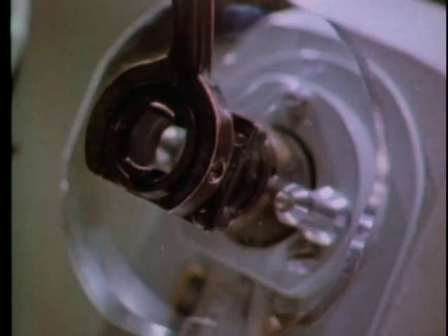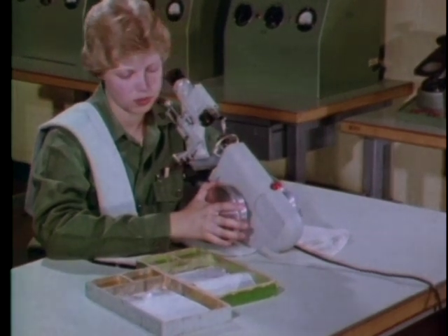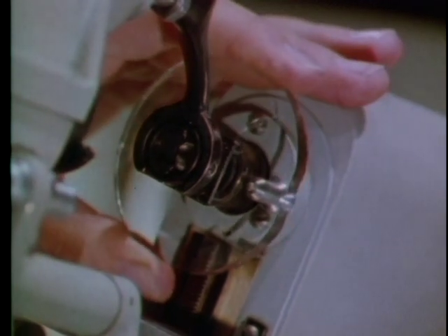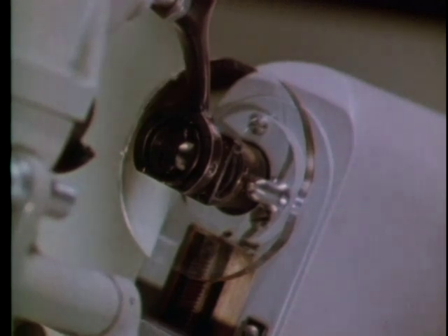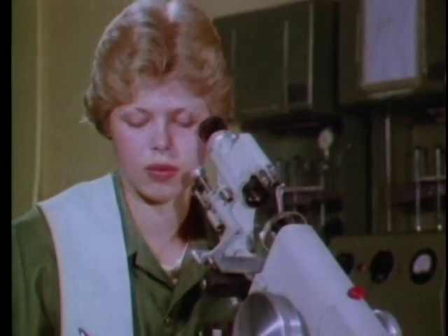If it's not the thin lines that come into focus first, turn the lens 90 degrees until you get a sharp focus on the thin lines. Center the lens, then read the power wheel setting — this is the spherical power of the lens. Write it down in plus cylinder form.